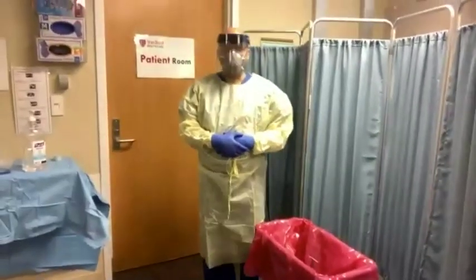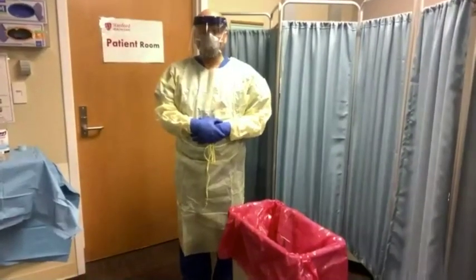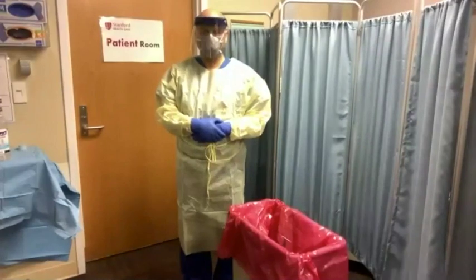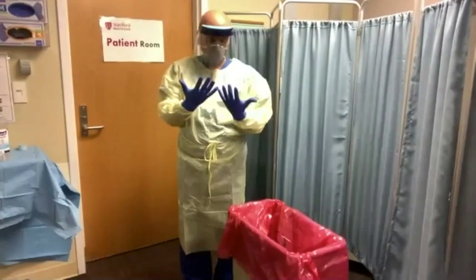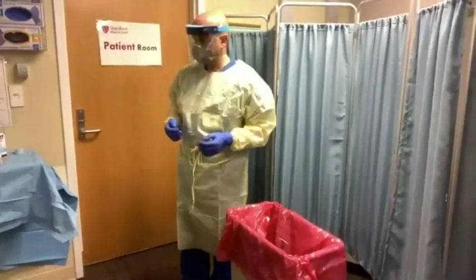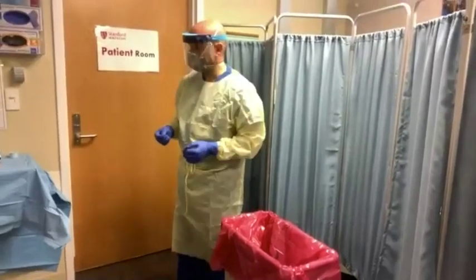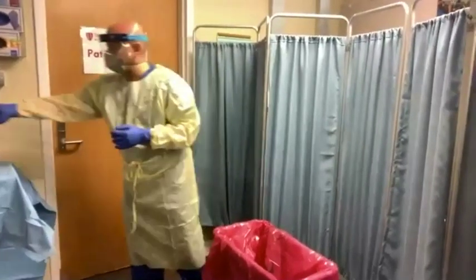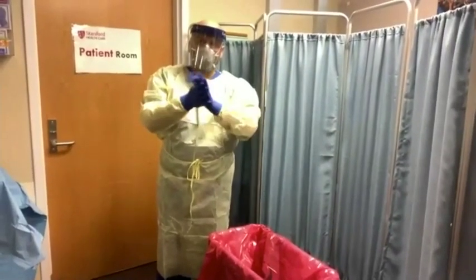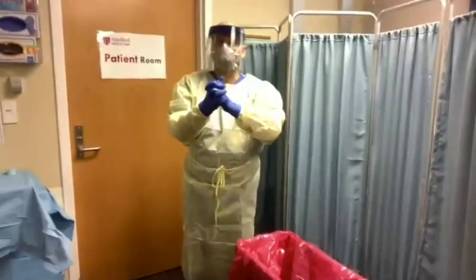So very important — while you're still in the patient's room, you want to make sure that you remove your gloves and gown. First, make sure they're not grossly soiled. Then begin the removal process by untying the gown around the waist first and hold the straps. If the gloves are not soiled, you could apply gel on top of the gloves according to the CDC video.